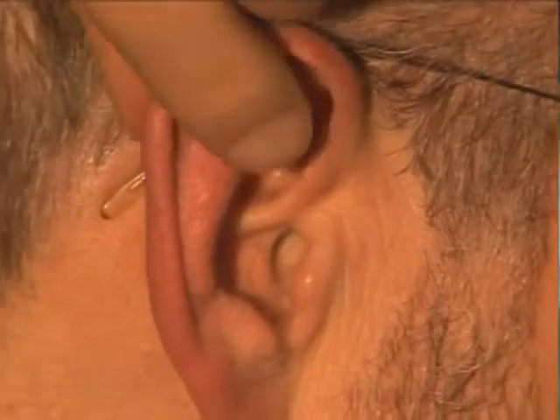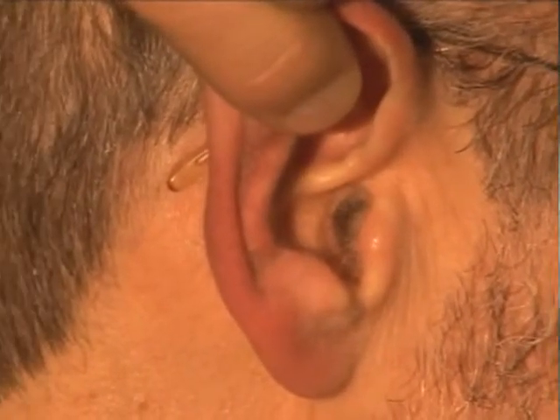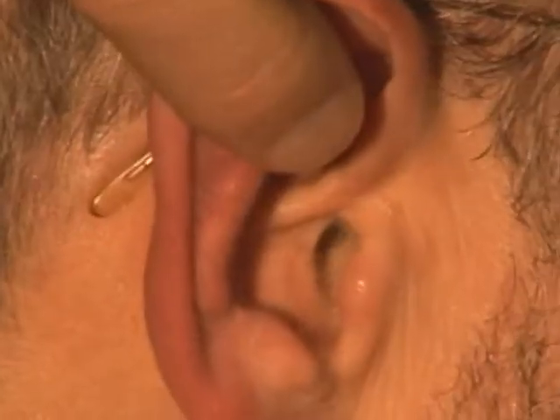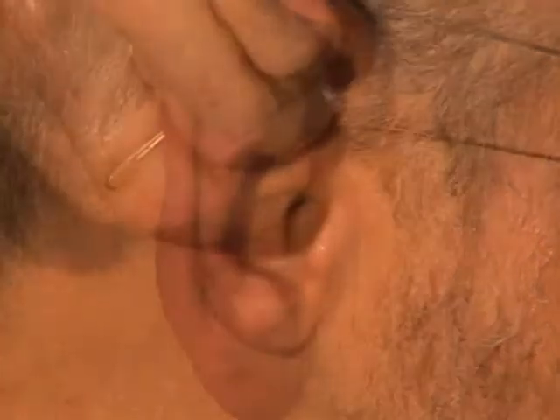So for example, use your right hand to insert the ear plug into your right ear. For different people, the direction of pull will vary somewhat. But in all cases, you begin by firmly grasping the ear between the thumb and forefinger and pulling it away from the side of your head. If you feel resistance as you begin to insert the ear plug, then try pulling the ear in different directions, and what you may find is that suddenly the plug slides in more easily.